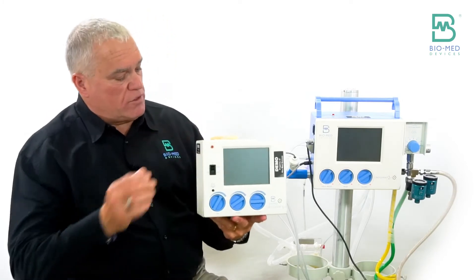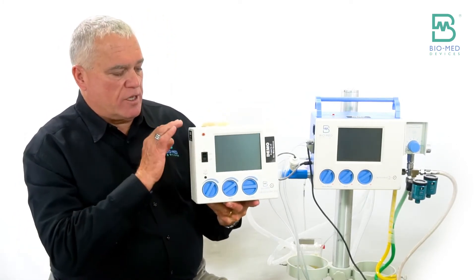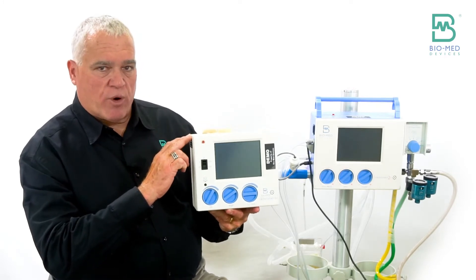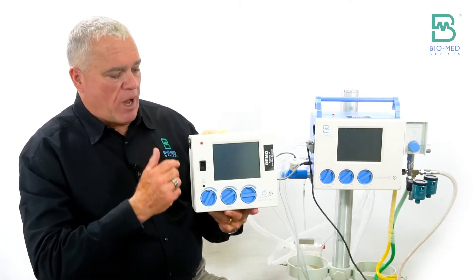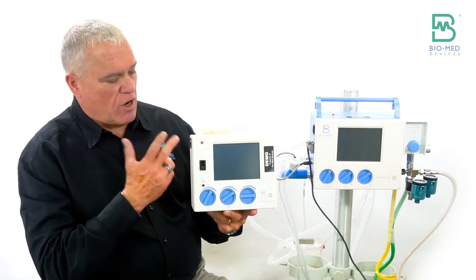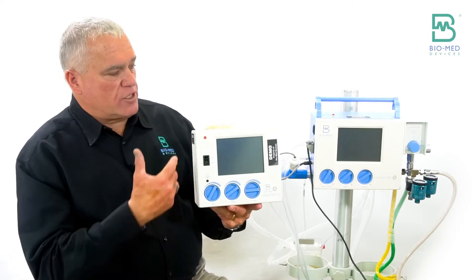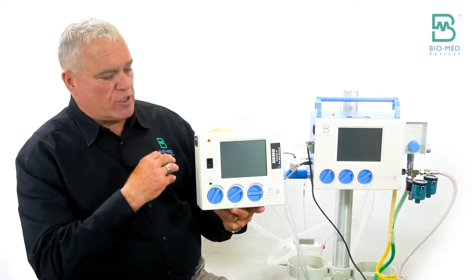It's probably most often associated as the built-in version. This is typically built into a transport incubator made by Airborne Life Support, International Biomedical. As such, they put the blender in a different spot.